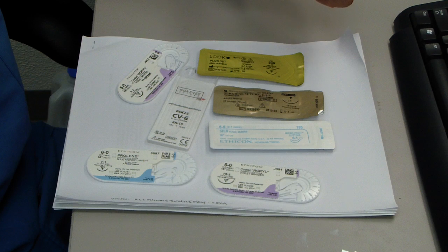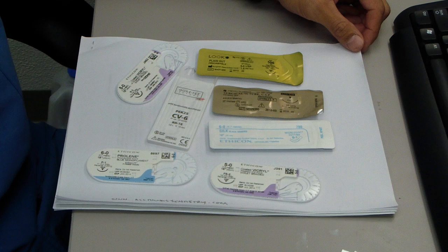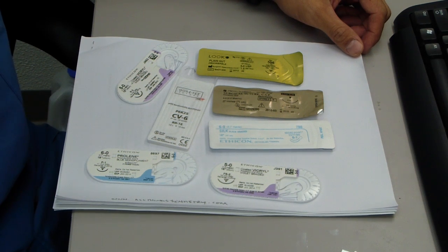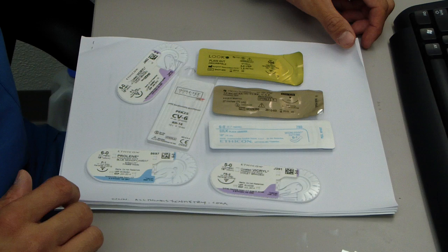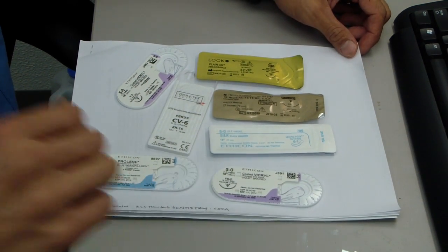Let's just go over not only the suture kind of indications, but also the needle. I mean, I've reviewed, I've looked through magazines or catalogs and tried to figure out which type of needle I'm supposed to use and I have no idea. I mean, the pictures don't tell you squat, so let's just review that really quick.